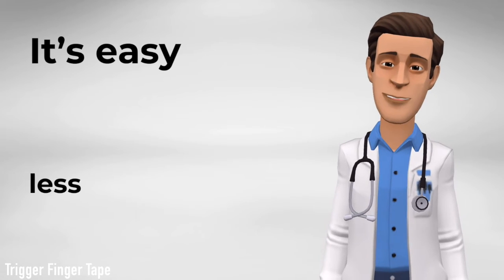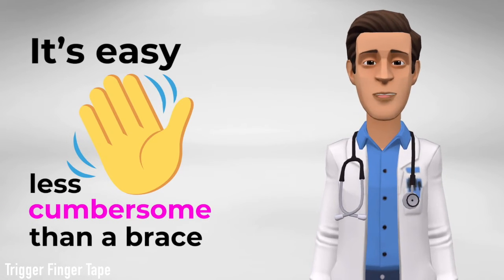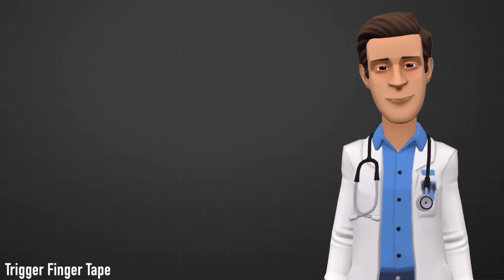It's easy, less cumbersome than a brace, and often allows full use of your hand.